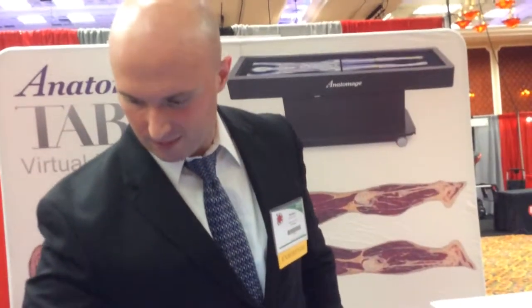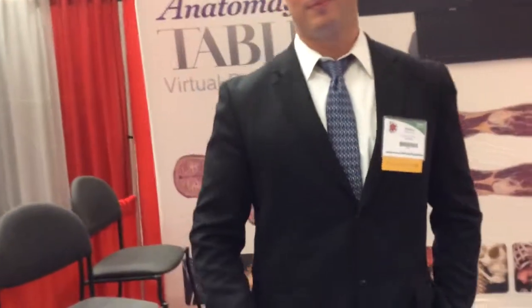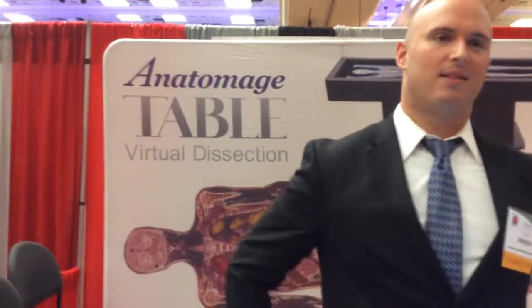So physicians can look at their patient in 3D and plan out their surgery on this table. So this table could be sitting in a room just off the OR, like a conference room or something, and they can plan it out. That's incredible. So what they'd use now would just be an X-ray box or something, or a laptop or desktop computer, alternatively.